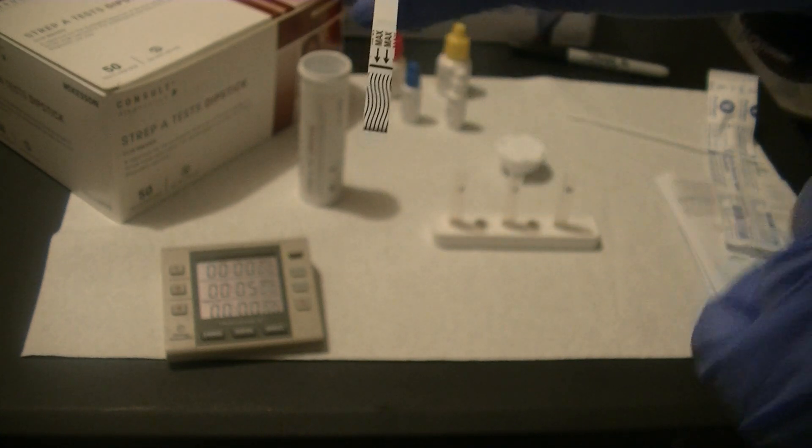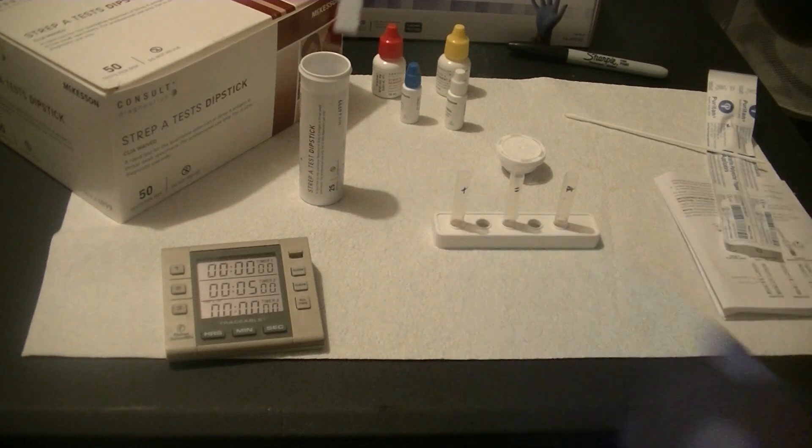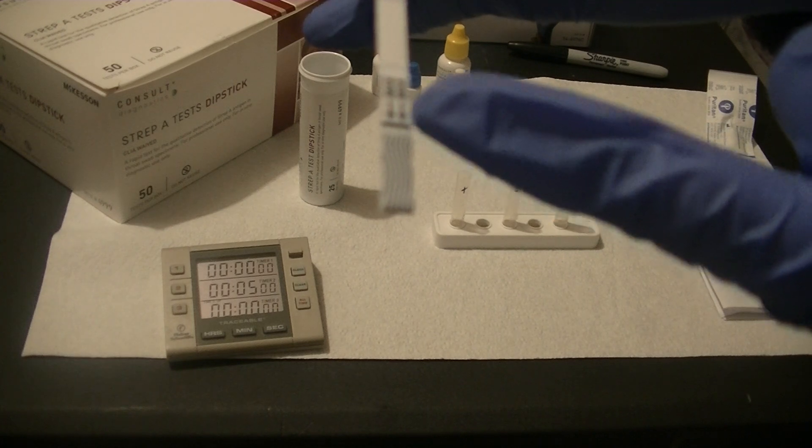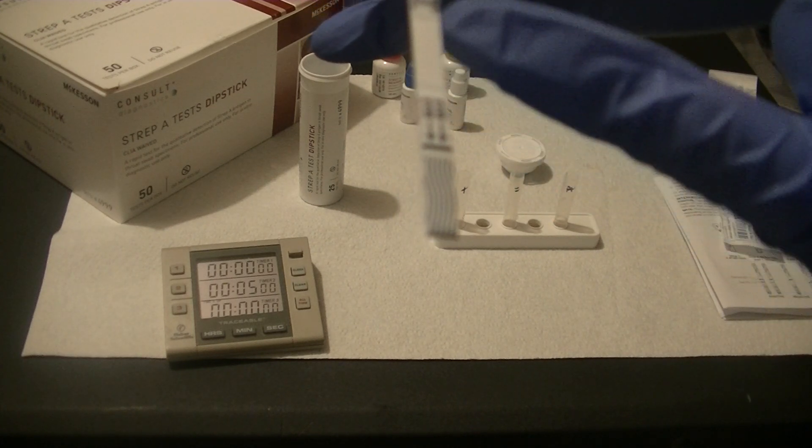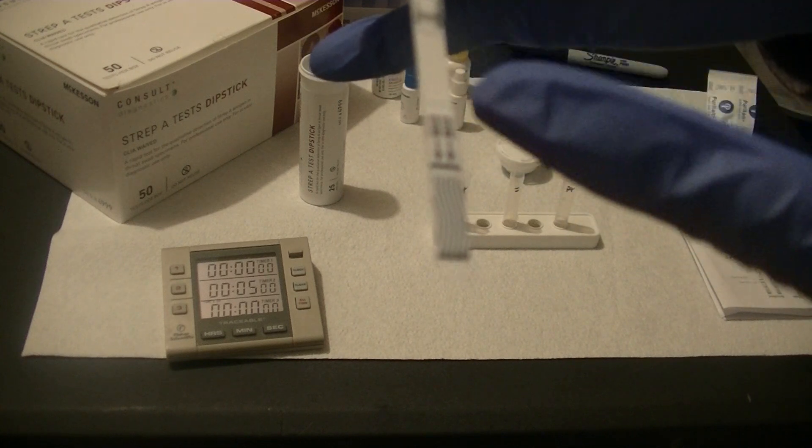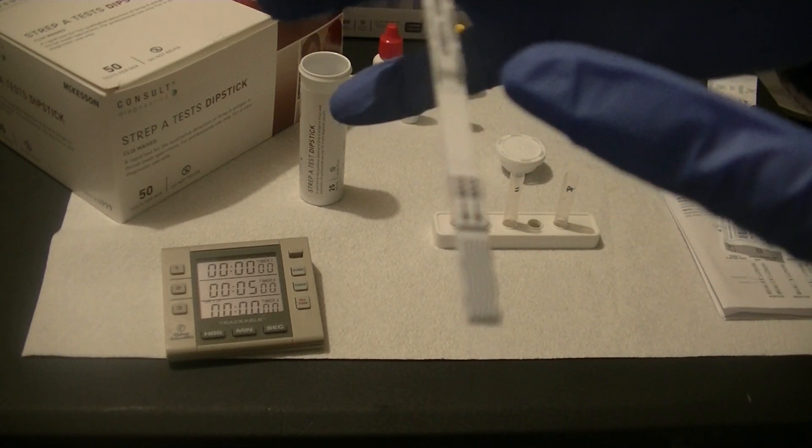That amount of liquid we put in was only four drops for each because it will not go over the maximum line. That sample is going to be drawn up into the filter paper area. The filter paper area is like an immunoassay, just like with the pregnancy test.